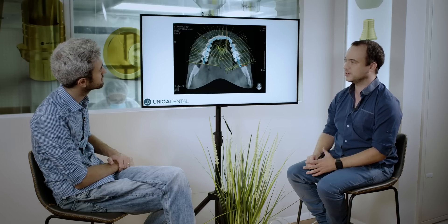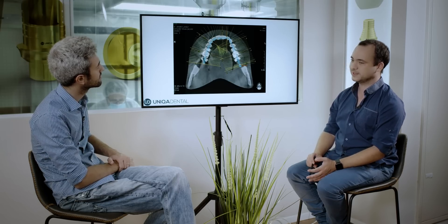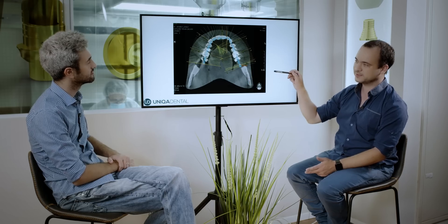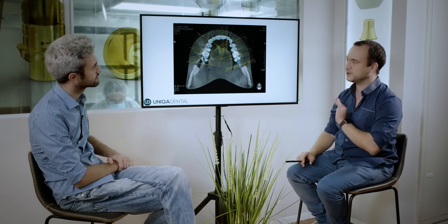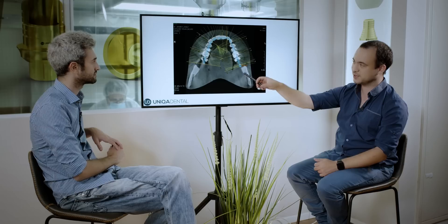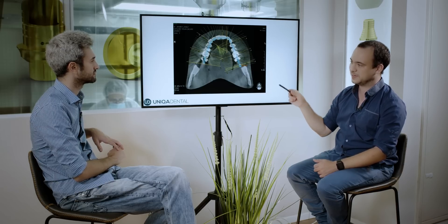So the first thing I'm going to do is make a line that goes through the whole jaw — as you can see, the blue lines. The blue lines go with the arch of the jaw across all the teeth. To this line I have perpendicular lines that go each one millimeter.